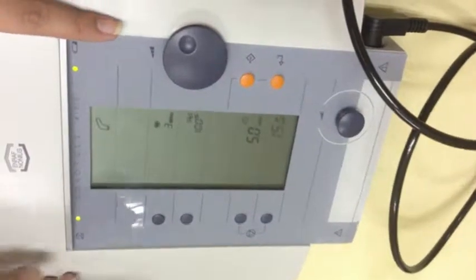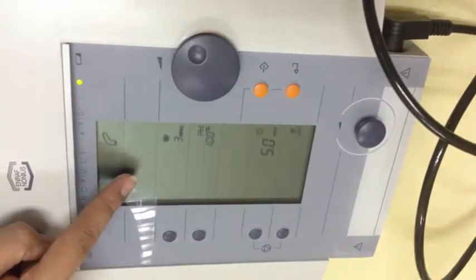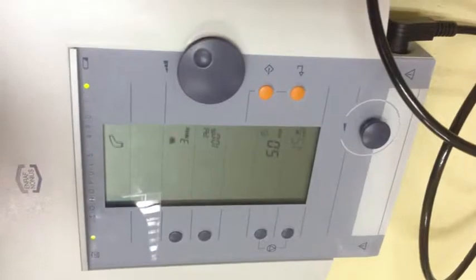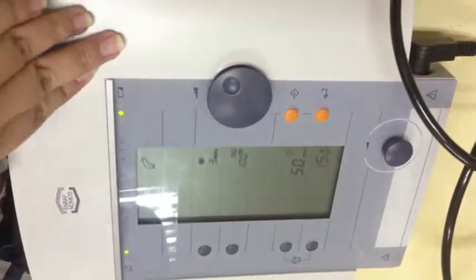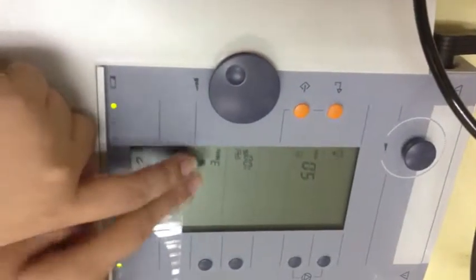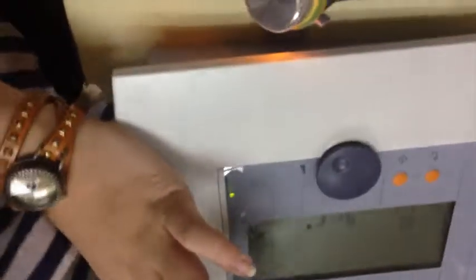Okay? So, for example, so sa frequency, unlike sa Sonopulse na yung orange machine doon, meron tayong small and big head. Okay? Dito, isa lang yung head na ginagamit natin. But we can change the frequency of the head. Okay? Dun sa setting ng machine. So, ang nakasetup na dito is 3 MHz. Okay? So, let's say for example, saan nga natin ginagamit ang 3 MHz na head? Okay, kapag mas superficial yung structure. If the structure is deeper, then we use a lesser frequency, usually 1 MHz.